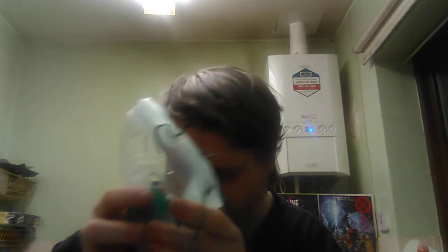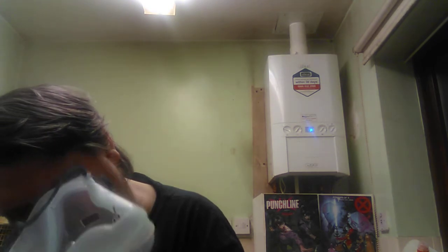I'm not sure. Possibly the liquid goes into that middle bit. I'll have a look — would you give me a minute? This bit's the easiest bit, because there are slots on there I'm pretty much sure. And that goes into the machine — the nebuliser machine. So there's that.